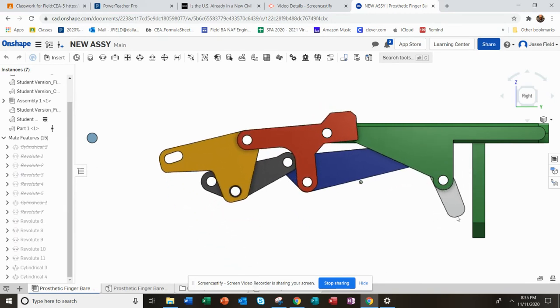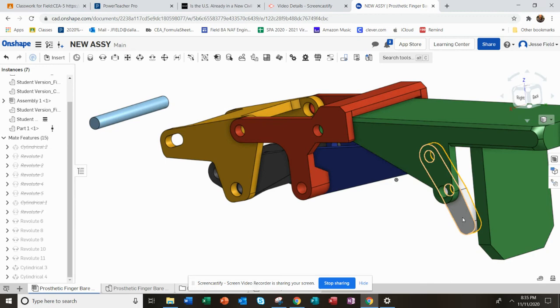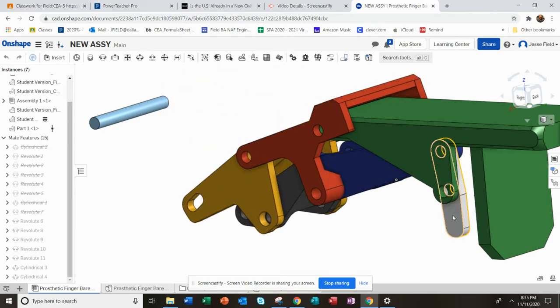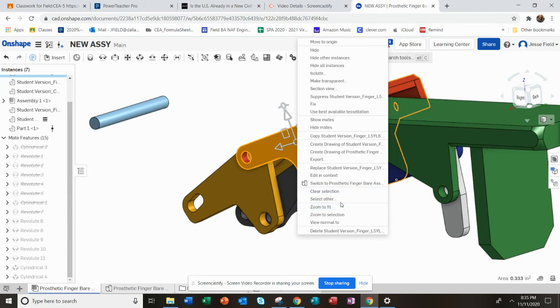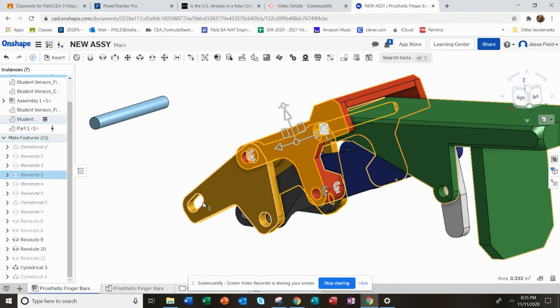It's more accurate since this has a back lip that can't go through the plastic — to fix that, when you right-click on a part, you can show mates, by the way. There's that mate.